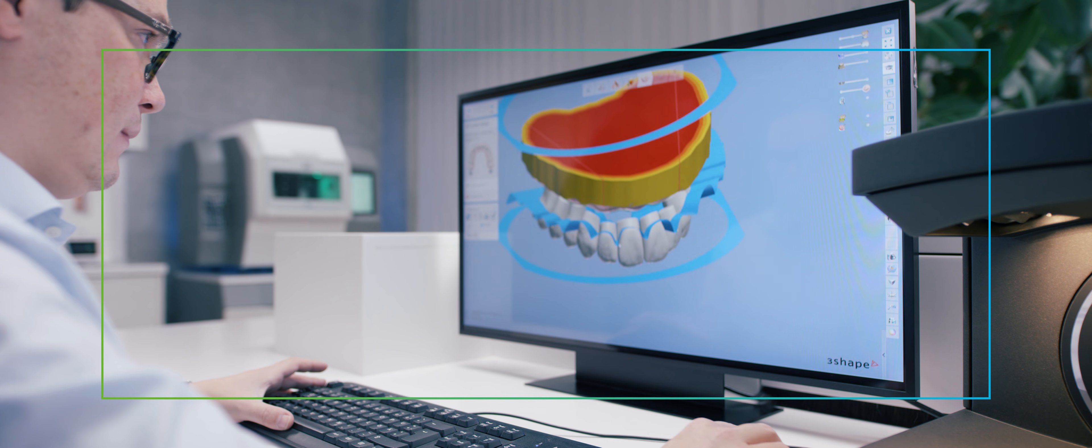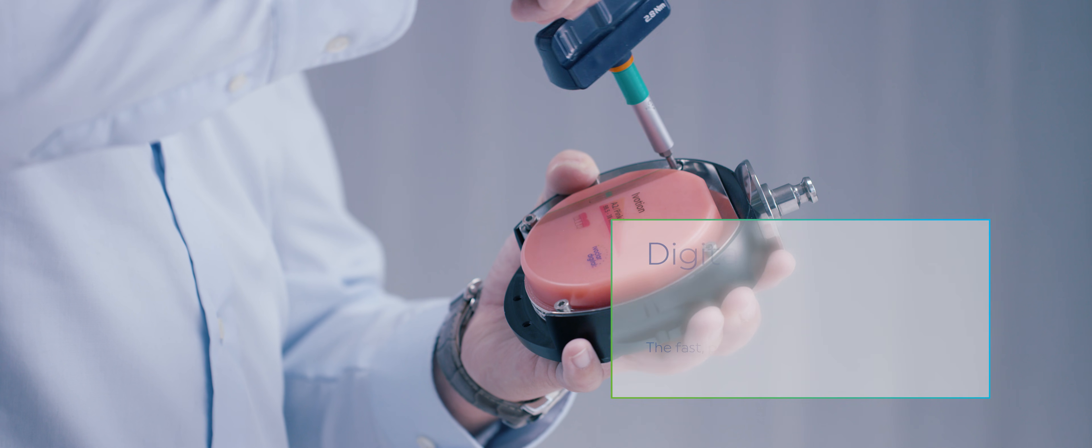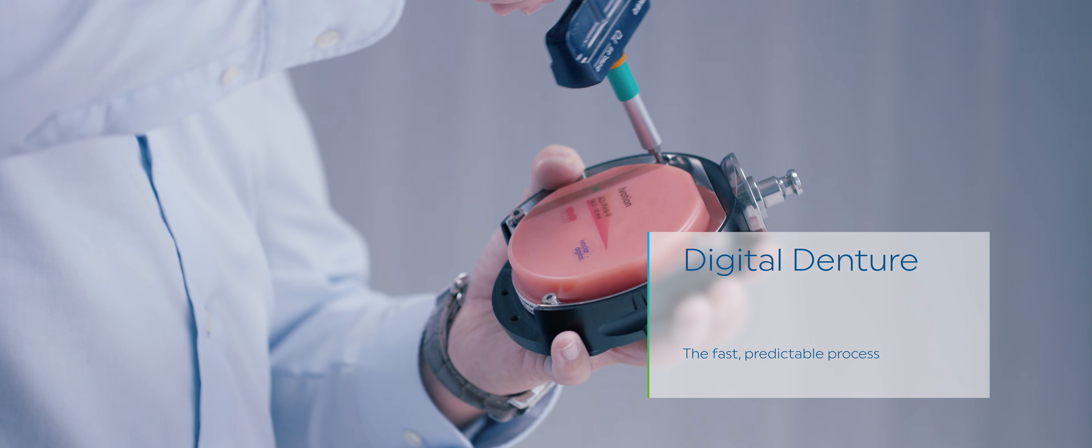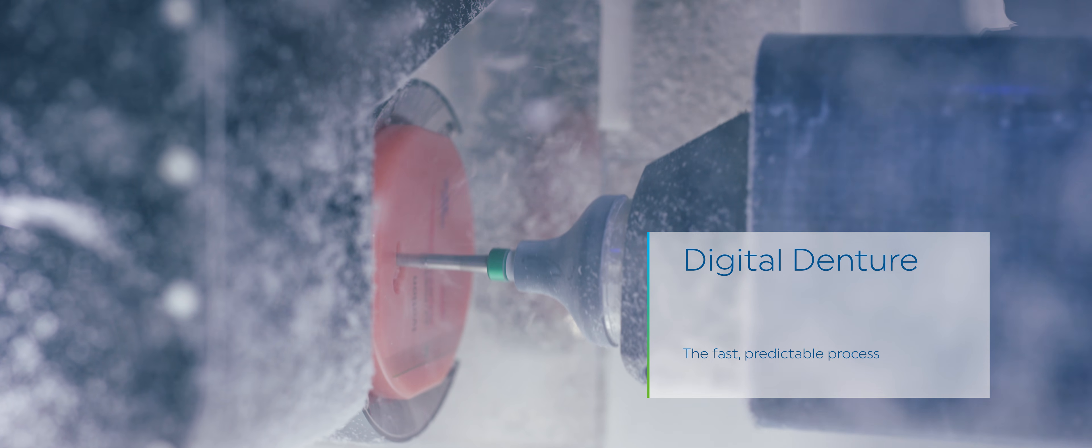The iVotion denture system is a fast and predictable process that delivers a finished denture out of a single disc for increased efficiency and attractive aesthetics.